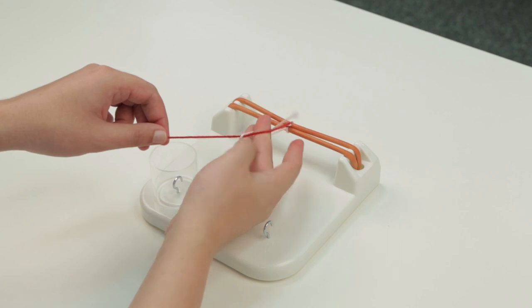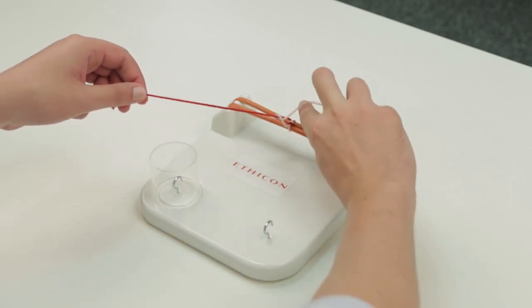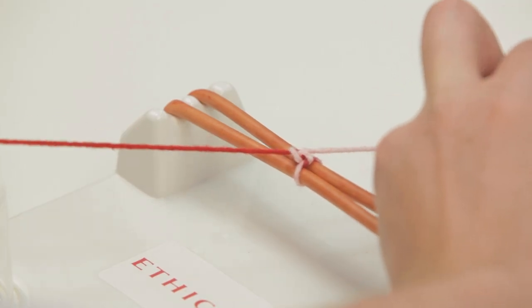Finally repeat using just two digits which you can do when there is less suture material and snug down the knot so it lies squarely.